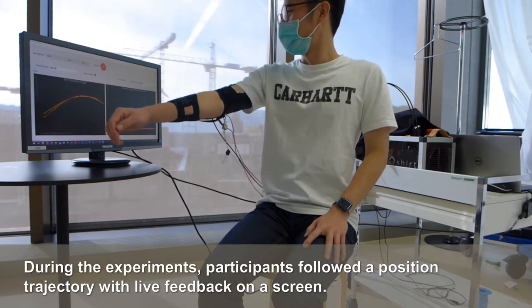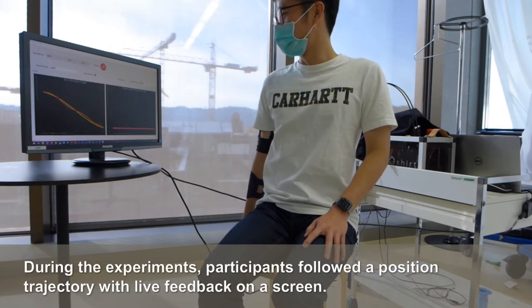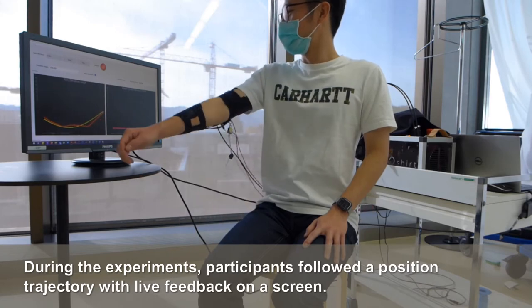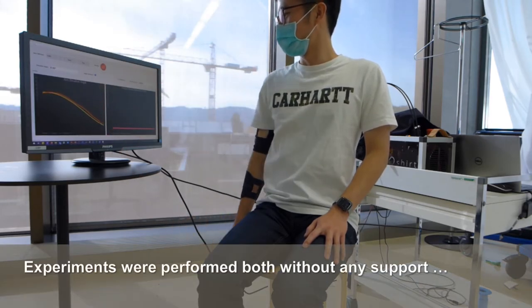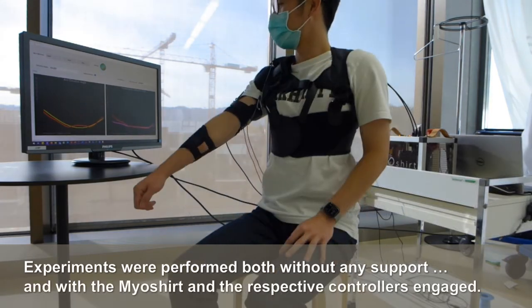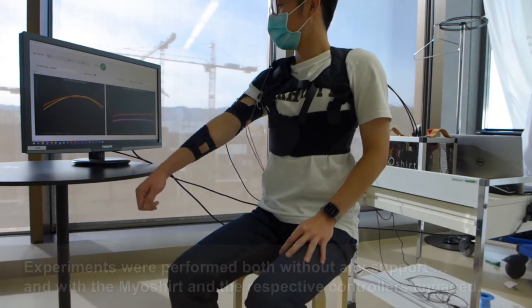During the experiments, participants followed a position trajectory with live feedback on a screen. Experiments were performed both without any support and with the Myoshirt and the respective controllers engaged.